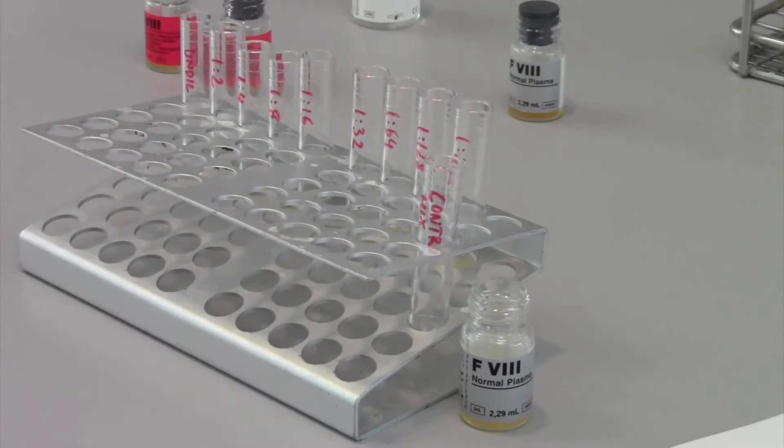As a final step, you need to add equal volumes of Factor VIII normal plasma and imidazole buffer to a mini tube.